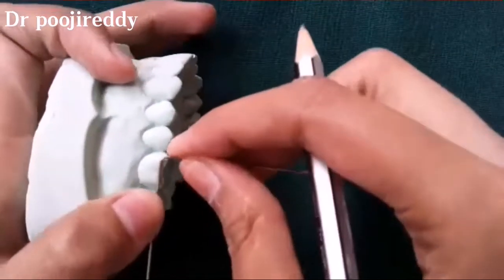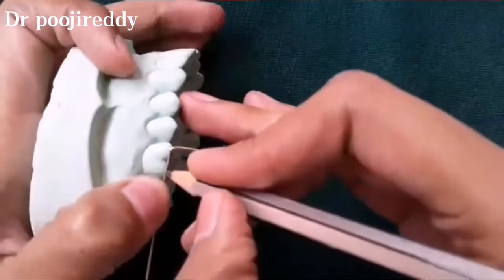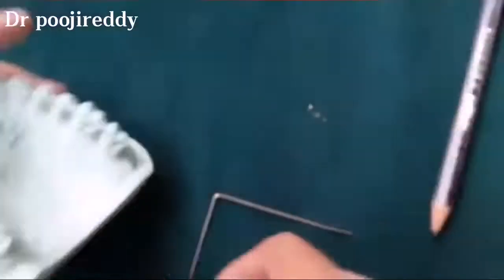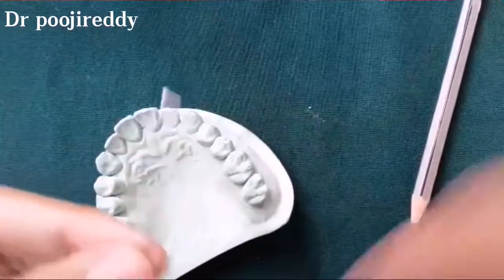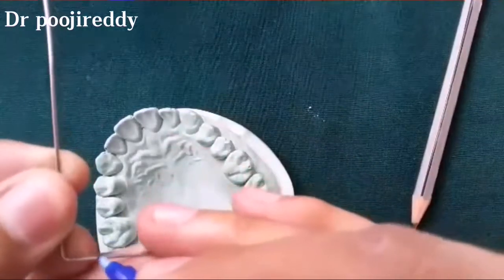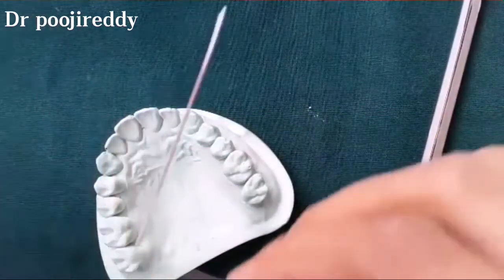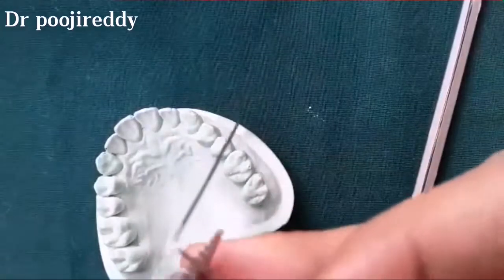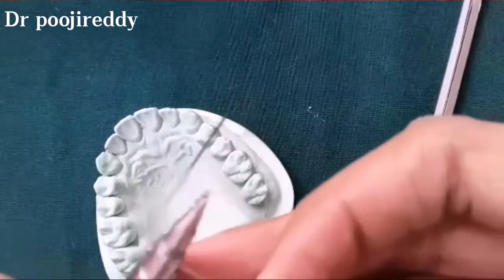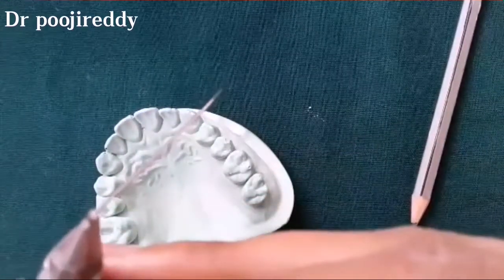And here mark the point for the second bend, and now second bend is made.